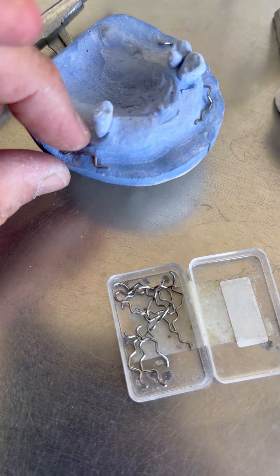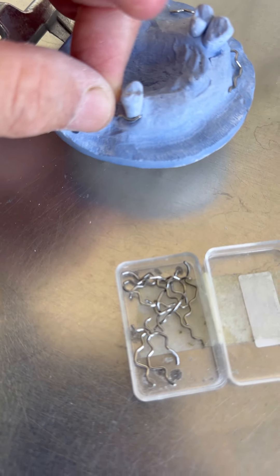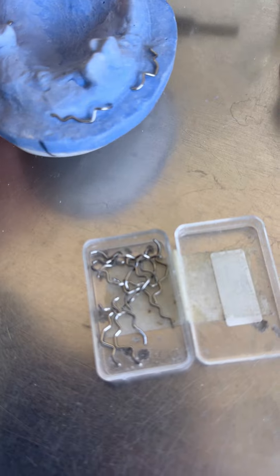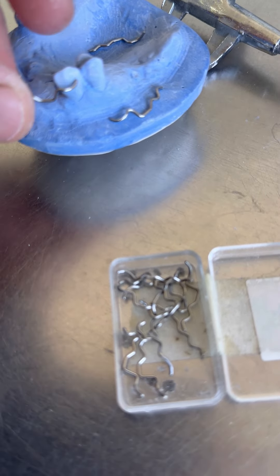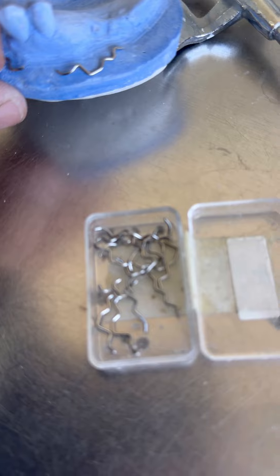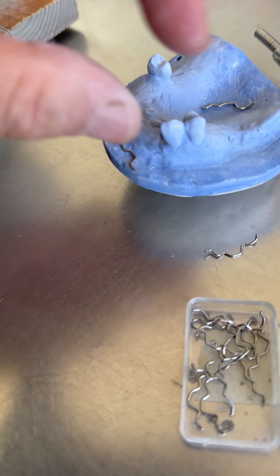Я их делаю разные по величине. Здесь узкая шейка, узкий зуб — нашёл подходящий. Вот он сюда точно подойдёт. Вот так он будет здесь стоять, этот будет здесь стоять. На клык тоже. Где-то можно чуть-чуть подогнуть. По величине — вот видите — раз, вот так вот становится. Под шеечку — хорошо. И этот тоже так же.